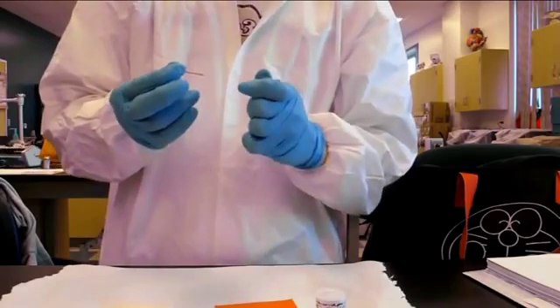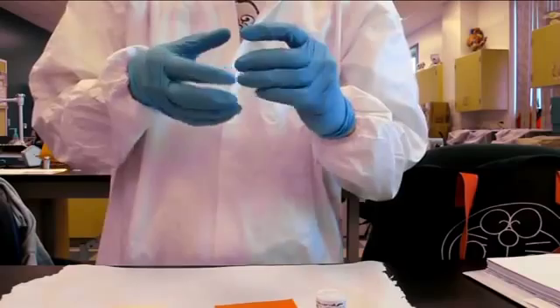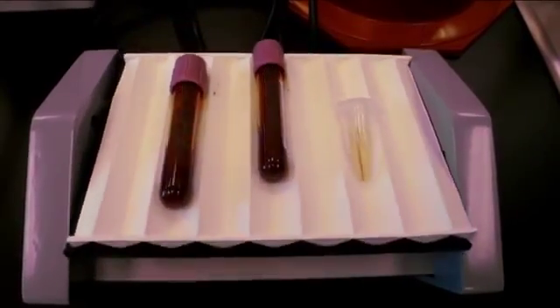Open the cap of the isotonic diluting fluid and insert the capillary tube. Close the cap. The solution will now need to be mixed. This can be done by placing it on the rocker.